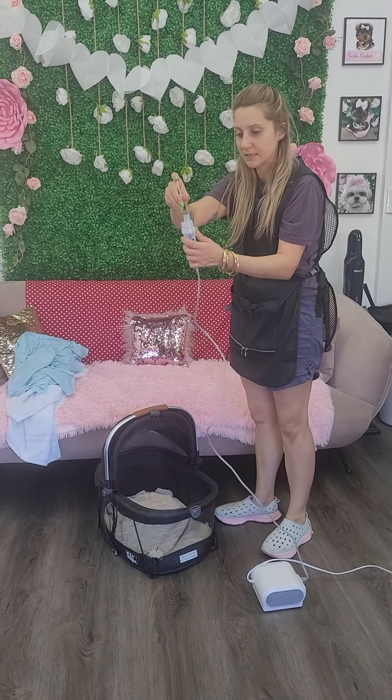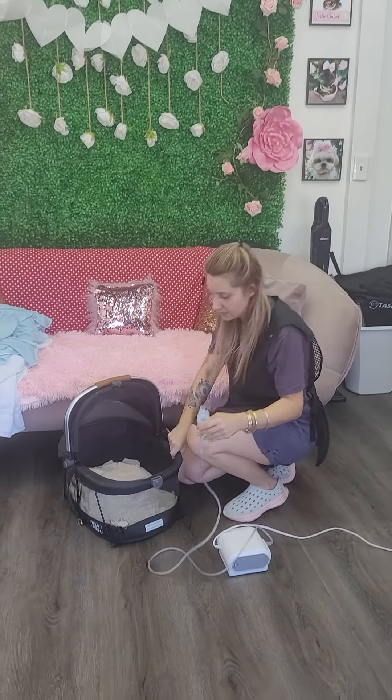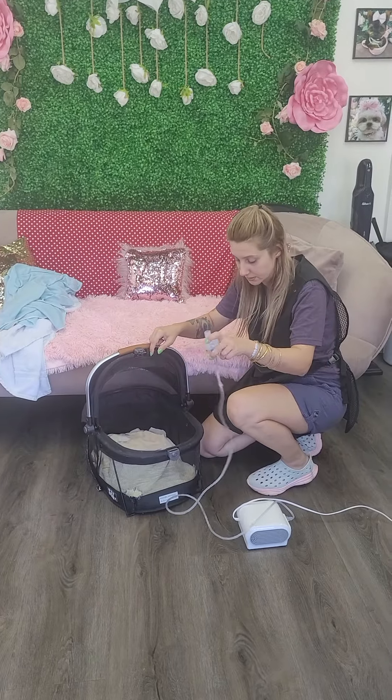You can put the medicine inside of the nebulizer like this, and hook it into a carrier. This is one of the ones we use, or the one to go home with is fine.